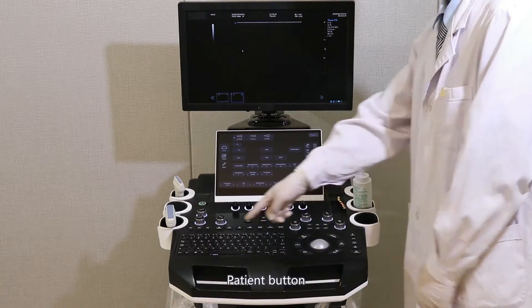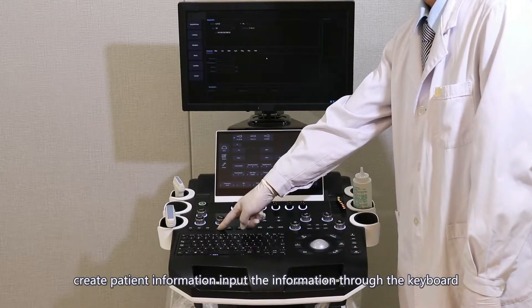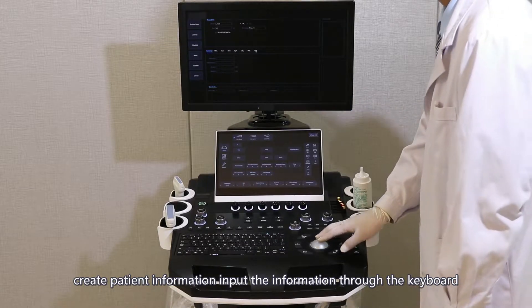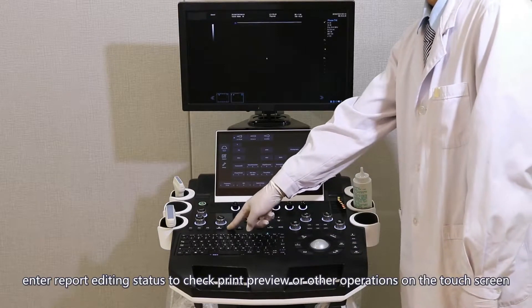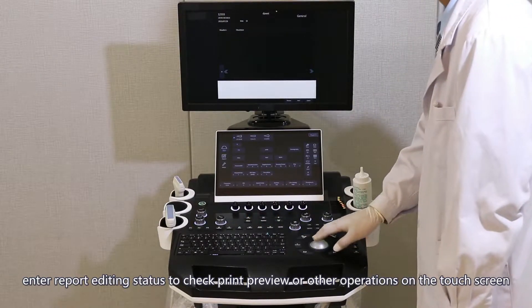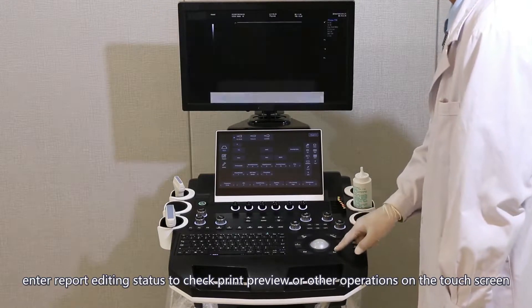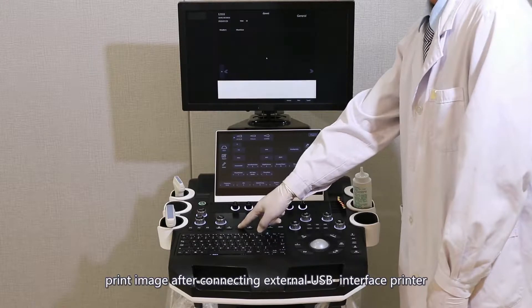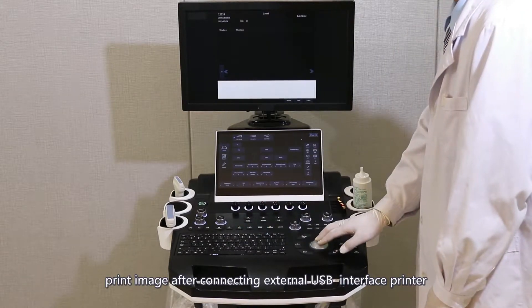Patient button: creates patient information and inputs it through the keyboard. Report button: enters report editing status to check print preview or other operations on the touch screen. Print button: prints an image after connecting an extra USB interface printer.